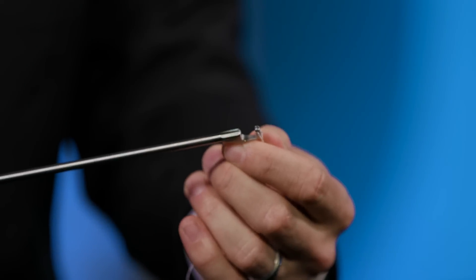Once you load your suture, you're ready to pass. The device will fit through an 8.25 millimeter cannula and can be used for either an interportal capsulotomy or a T capsulotomy. It's recommended to compress your jaws and squeeze your front trigger before you enter the dam of your cannula to avoid any damage to the cannula and the suture.